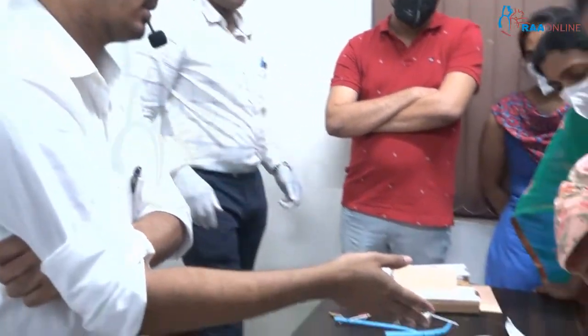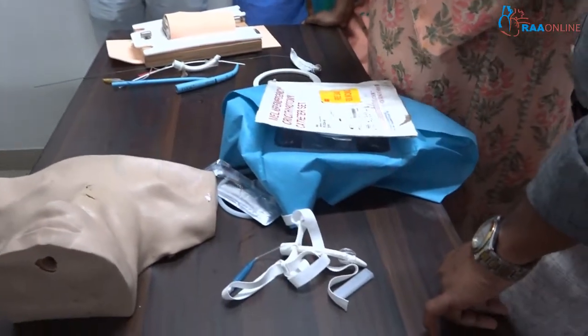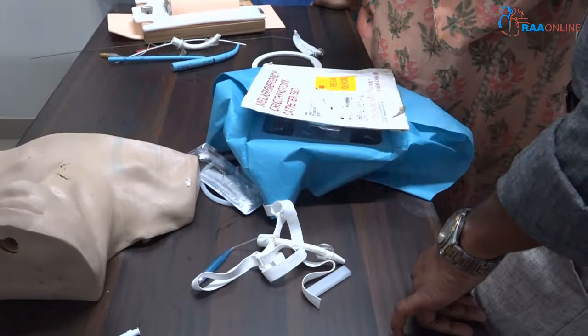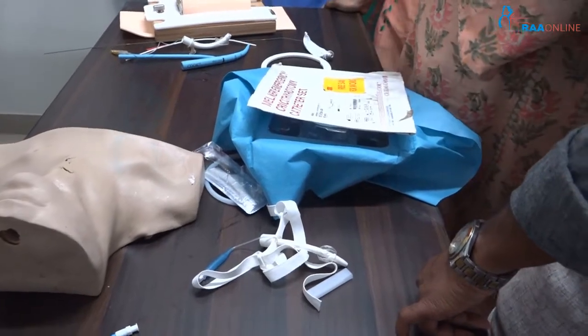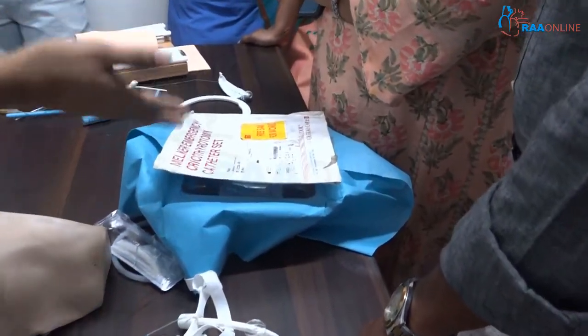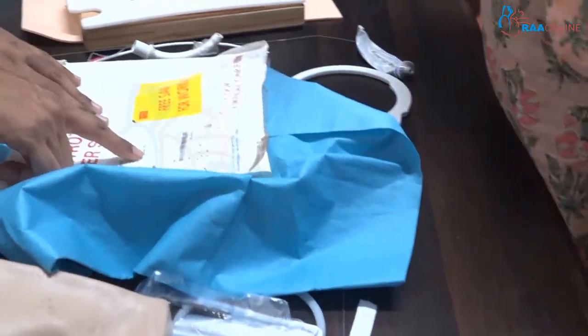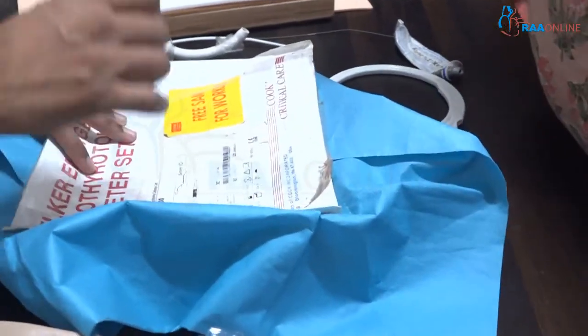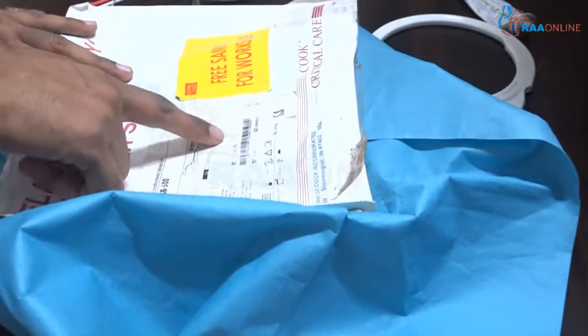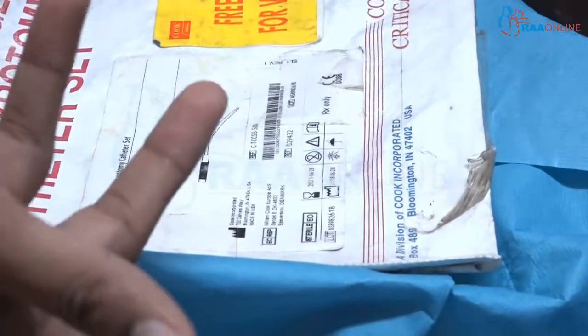The Melker kit — there are a lot of companies but Melker is the most common and most successful for needle cricothyroidomy. It contains a 5mm cuffed cricothyroidomy tube and one dilator. This is called the obturator — it is missing here but it will be attached.